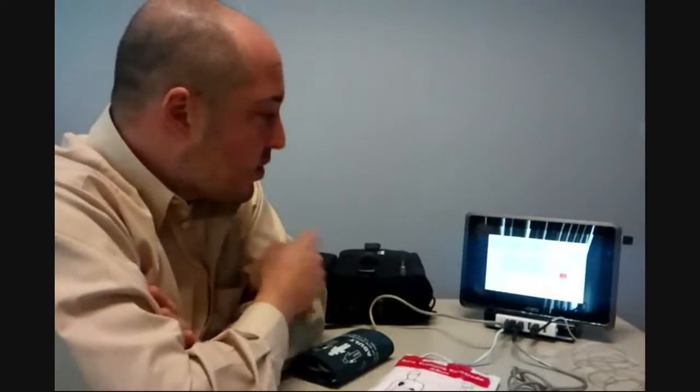Hello everybody, my name is John Matus and I'm from TrainingCenterManager.com. I'd like to show you today our monitor defibrillator training system, which you see displayed here.